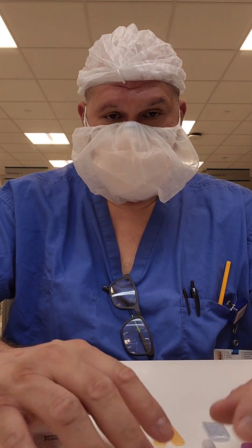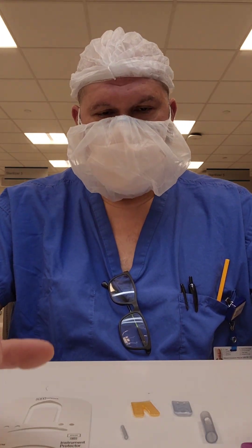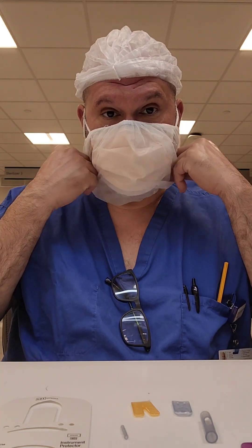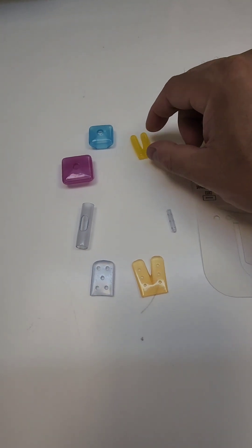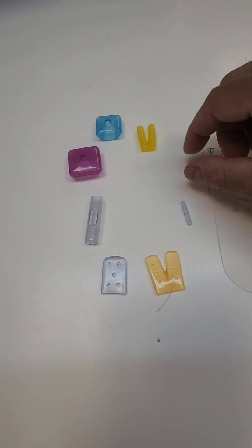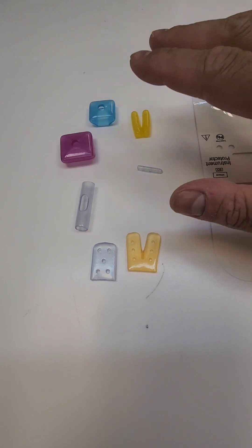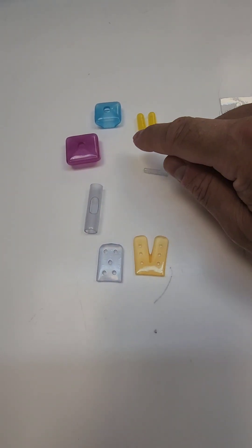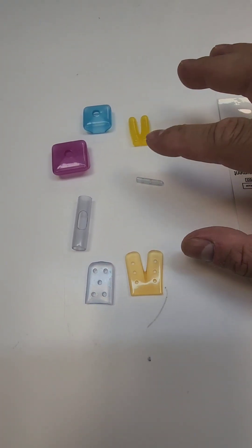There are many different styles of tip protectors. Most commonly, as of lately, are the index-style tip protectors. But we also have the little silicone rubber-type tip protectors. They come in various shapes and sizes for different functions — you have the little double-prong barrel one, the little single barrel ones for like skin hooks or little elevators, cylindrical ones, square ones, and flat ones — all kinds of types.